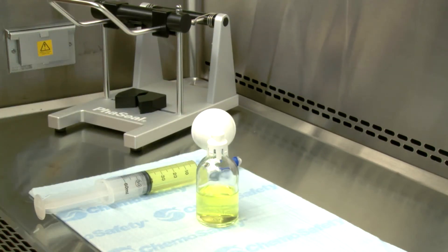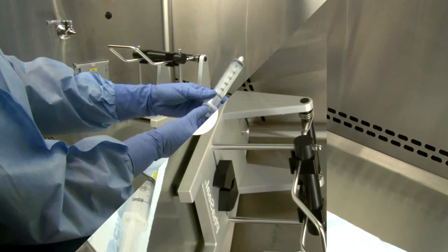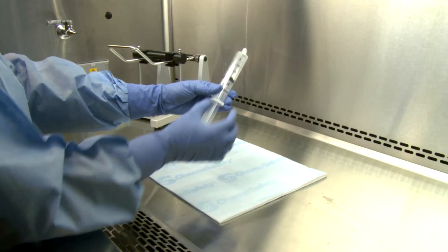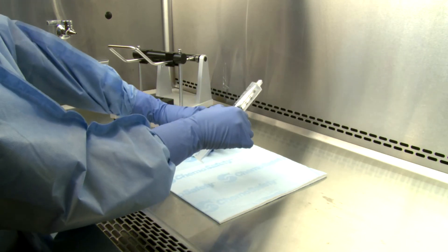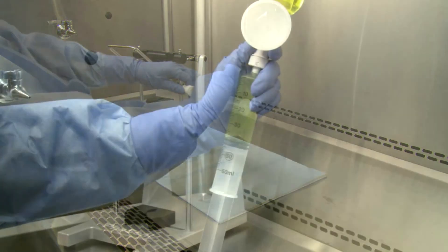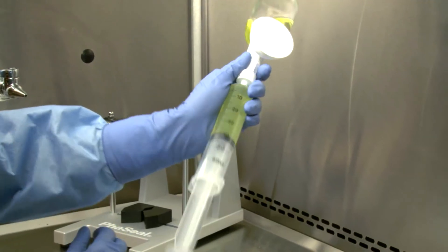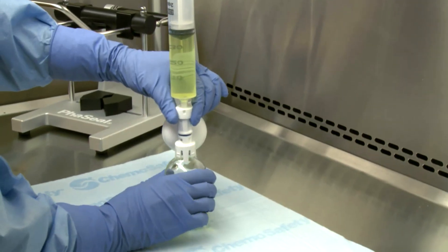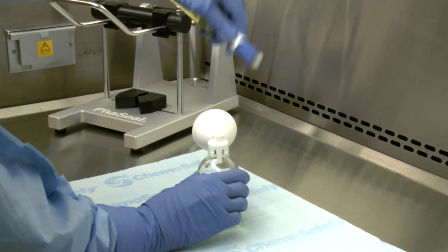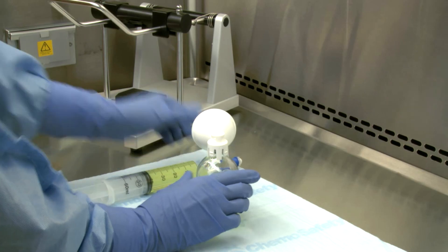If the dose required is greater than 50 mls, use the first syringe unit or prepare an additional syringe unit with 50 mls of air and engage it to the vial assembly using the push-turn-push technique. Inject the air, then invert the vial and aspirate the dose. Disengage using the pull-turn-pull technique. The filled syringe units are now ready for further preparation.